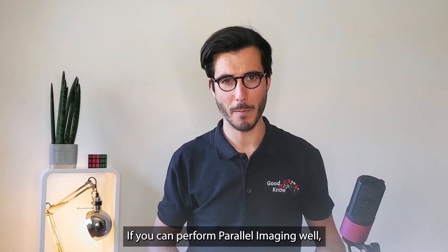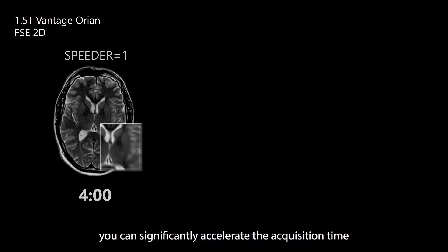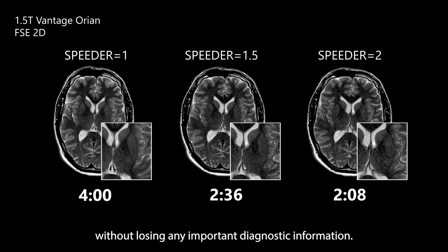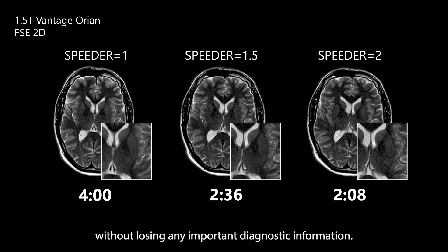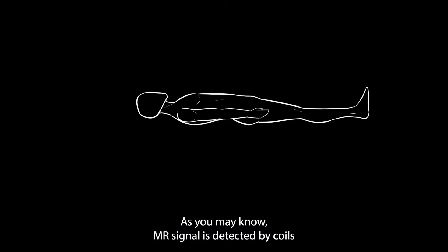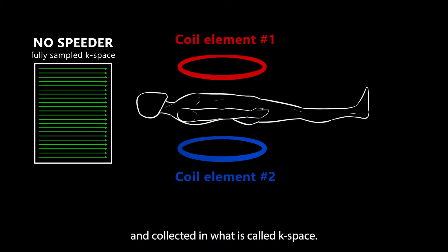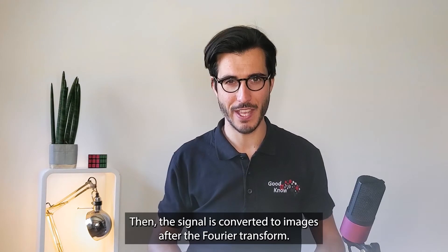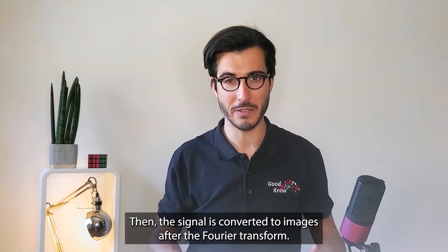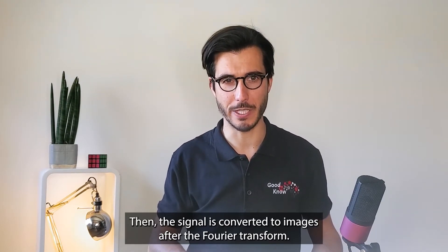If you can perform parallel imaging well, you can significantly accelerate the acquisition time without losing any important diagnostic information. As you may know, MR signal is detected by coils and collected in what is called k-space. Then the signal is converted to images after the Fourier transform.